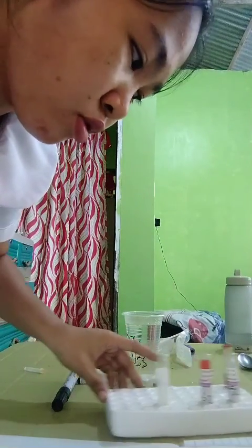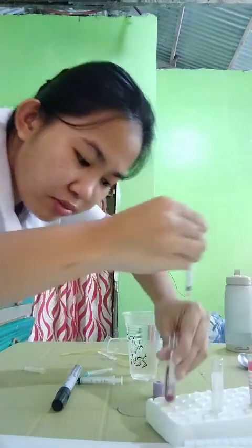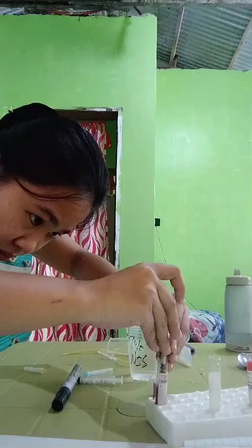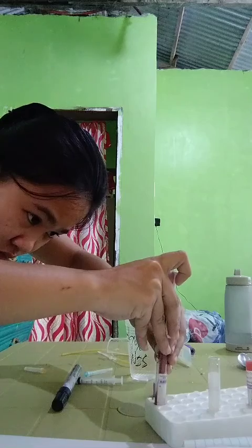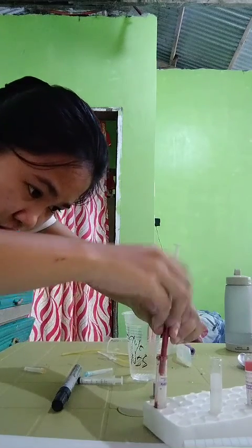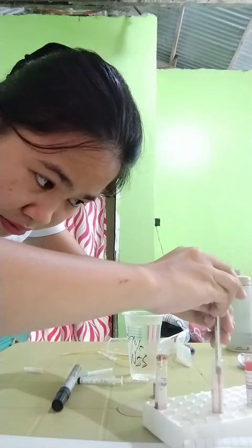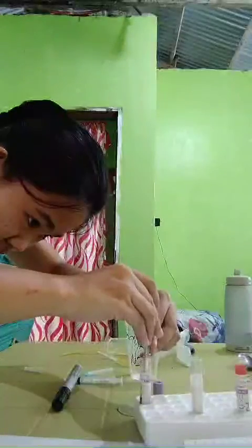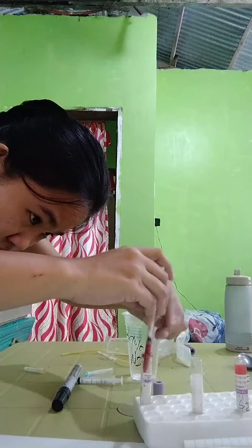First, we should get a 0.15 ml of whole blood. Need to aspirate 0.15. So, it asks to add more. So, you have here 10. Let's add another 5. Another 5. Okay.